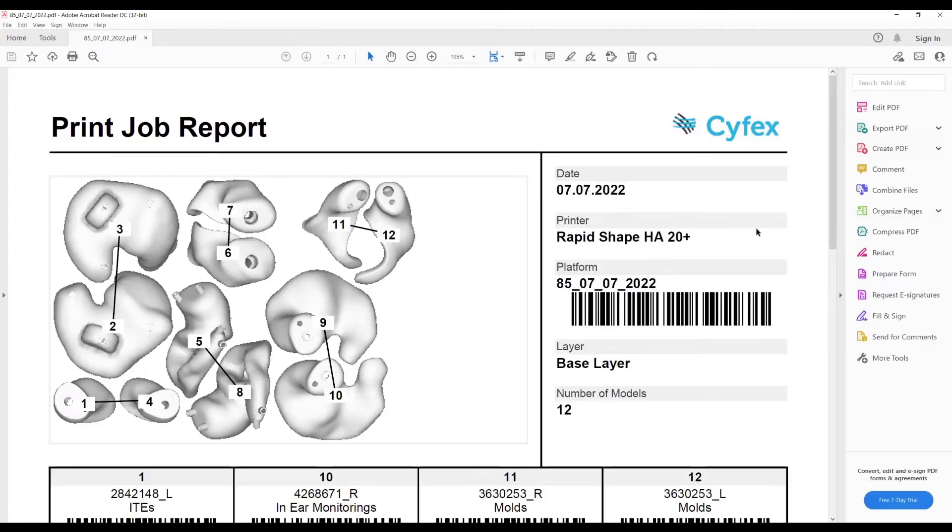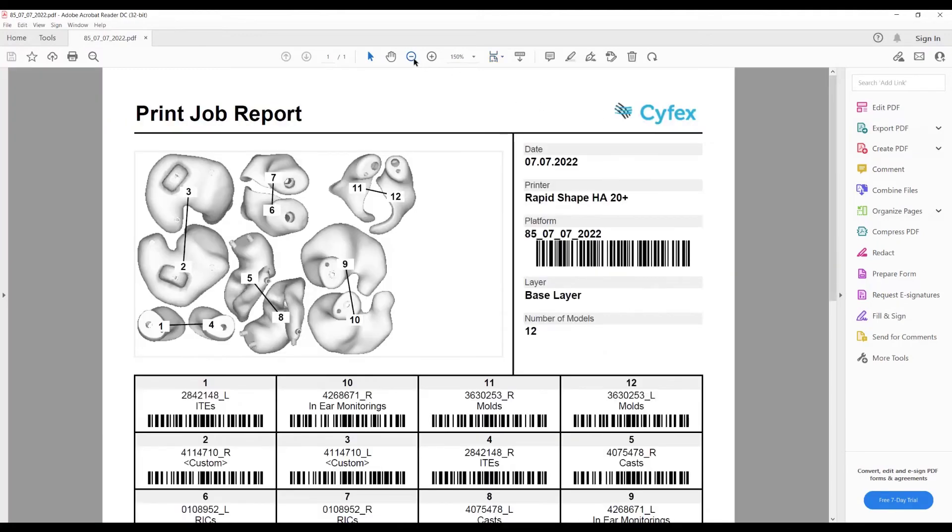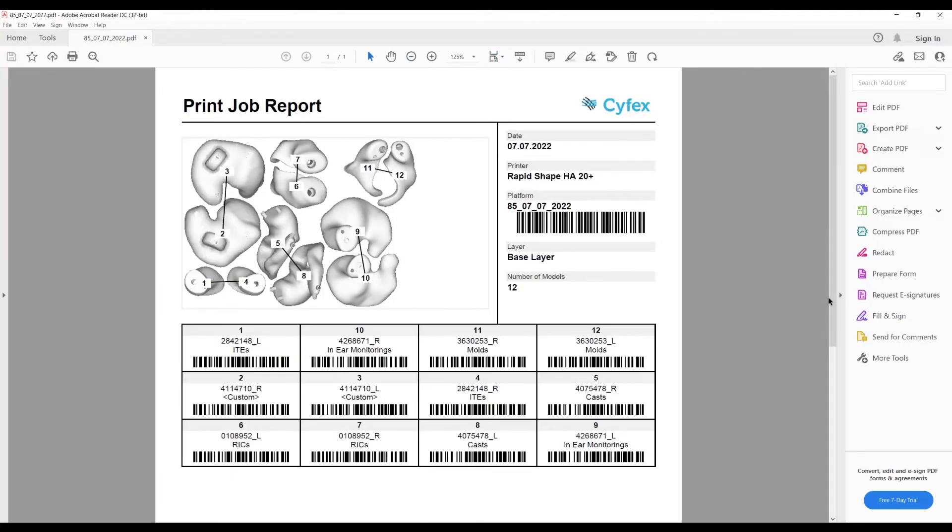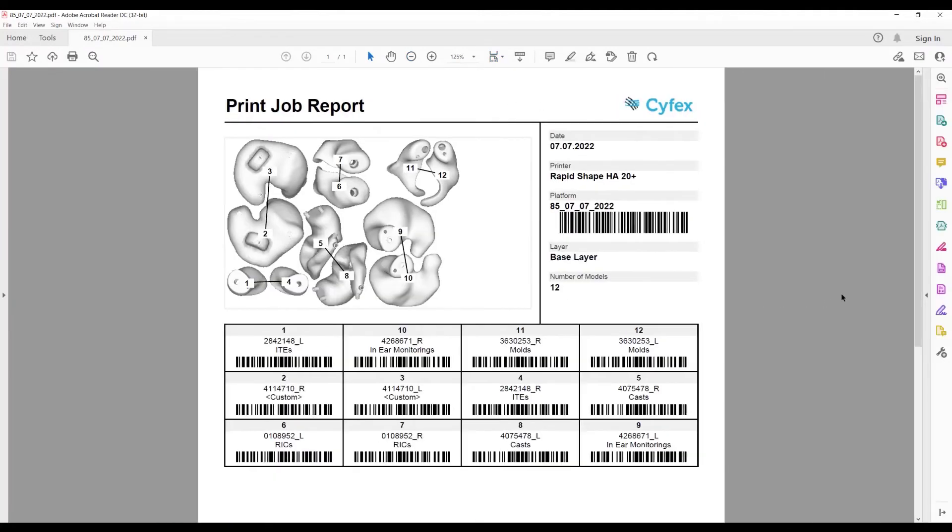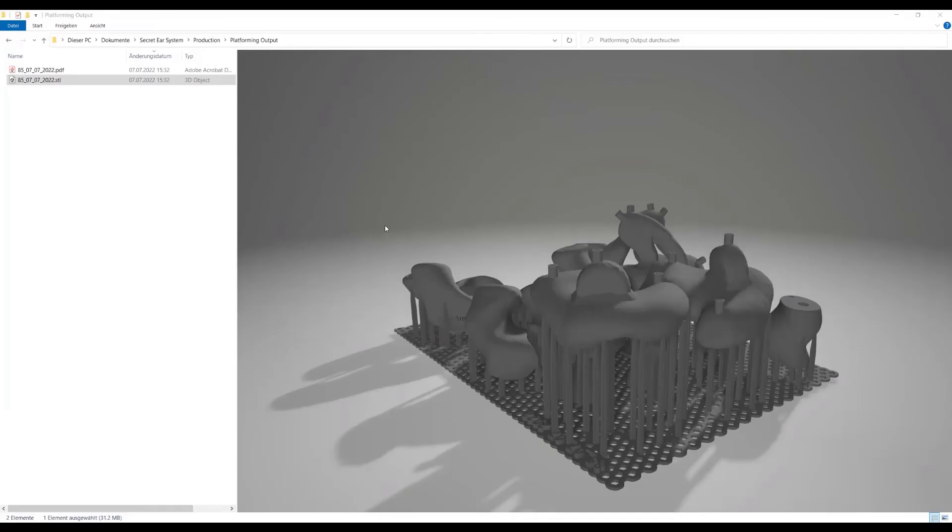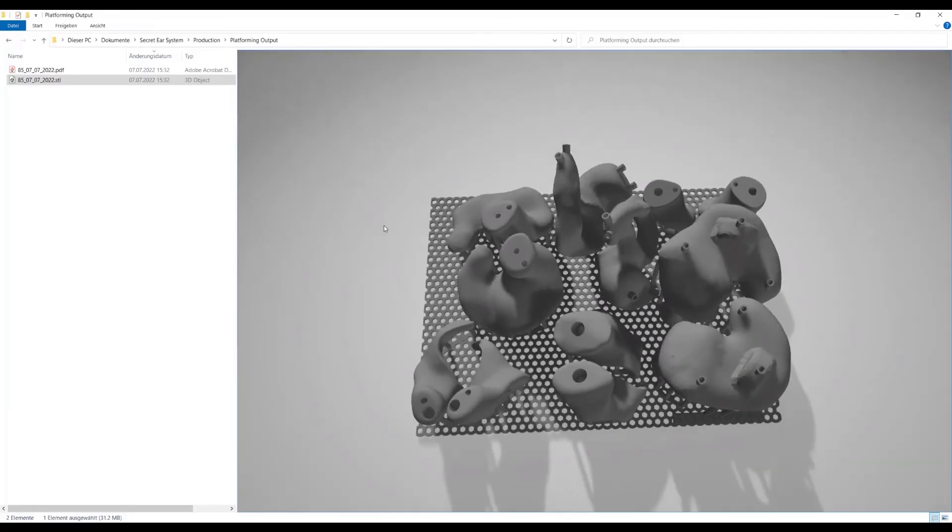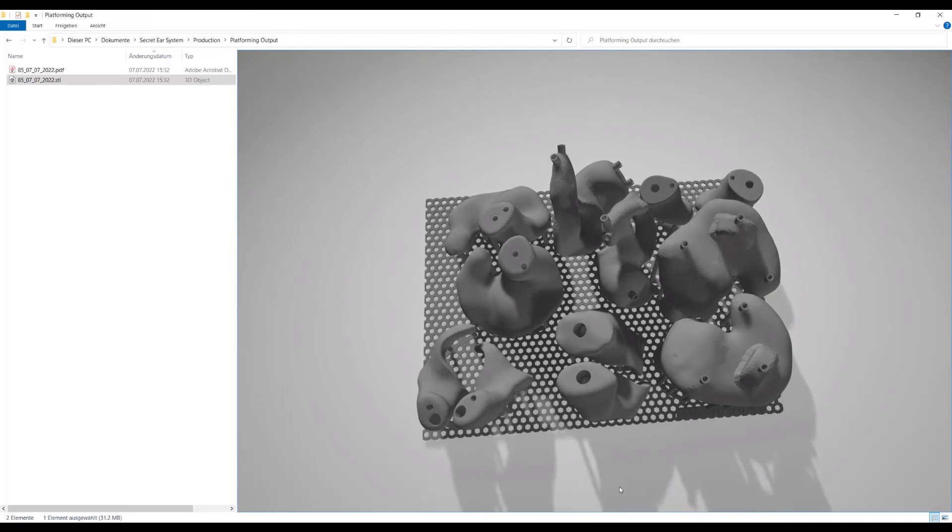We can see clearly here that the models are not very tightly nested, but as a trade-off the left and right models are close to each other and are connected by a line. Let us look again at our build.